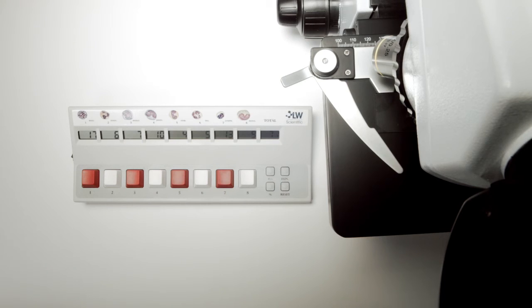After four minutes of idle run time, this counter will automatically shut down, conserving power and saving your work simultaneously.